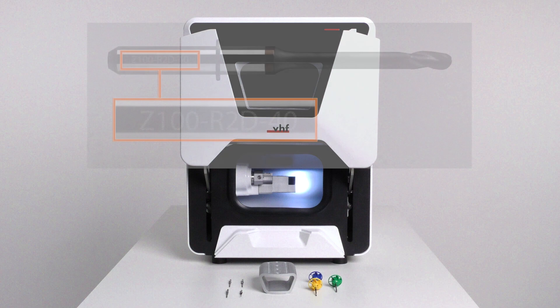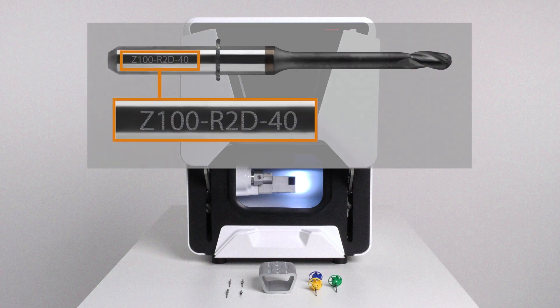On every tool, a specific combination of letters and numbers is lasered. This combination is called tool match code. Each tool can be identified by its specific match code. All AIR tools have a tool match code with the suffix T.